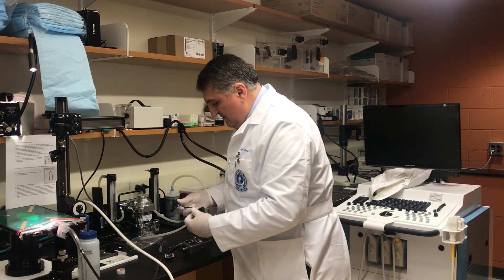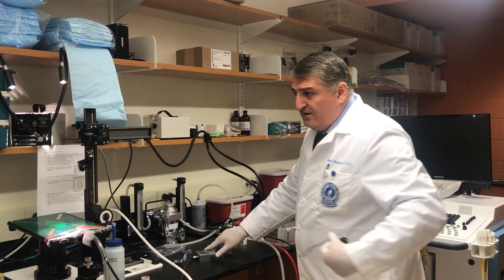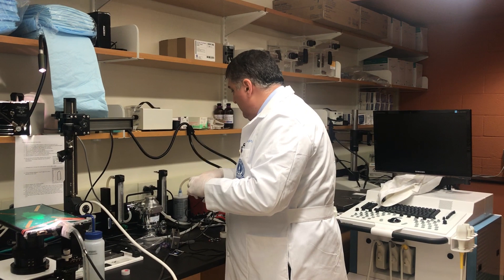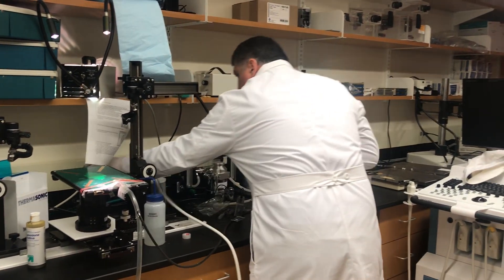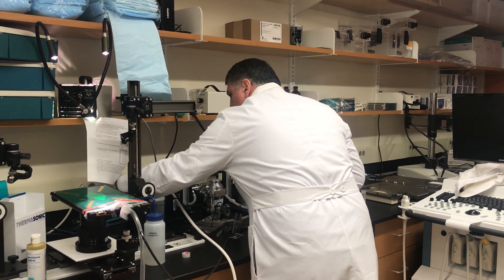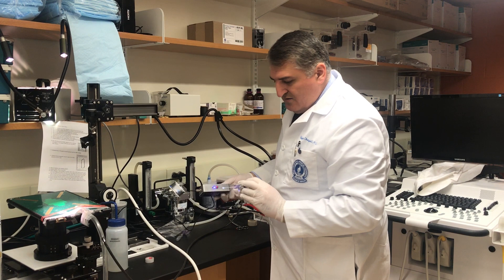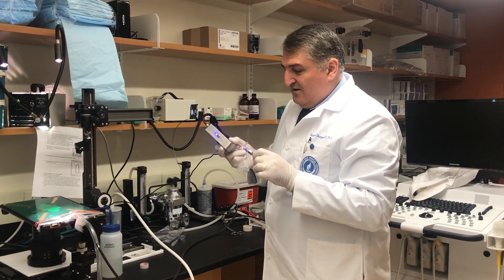If we have this system, we can continuously ventilate — we have a ventilator, which I can set up. We connect to positive pressure ventilators. And this is the light source; if the intensity is not enough, we connect it to power. So if you want to take pictures using these lights, boom.